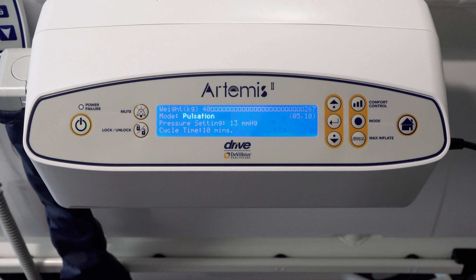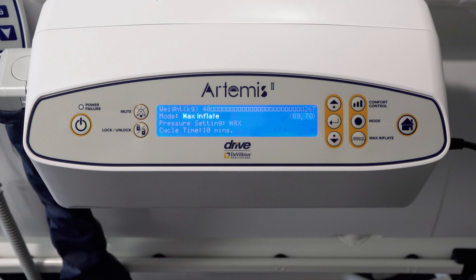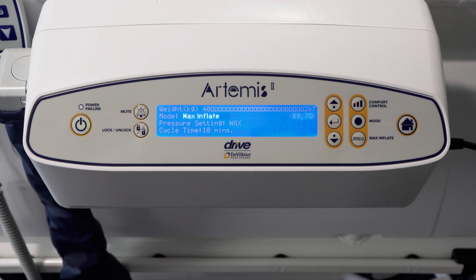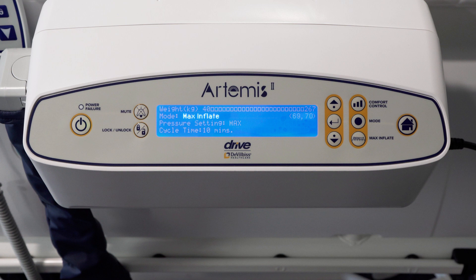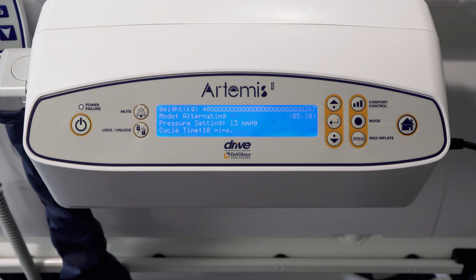Pulsation mode provides patients with constant low pressure therapy with the addition of a gentle up-down movement where cell pressures increase and decrease by 30% over a 10-minute cycle. Max inflate mode should be selected when patients are egressing the bed, rolling from side to side for personal care, and moving up the bed. This gives a firm surface for patients to find a purchase and less assistance is required from the caregiver. When max inflate is selected, after 20 minutes the system automatically reverts back to alternating.